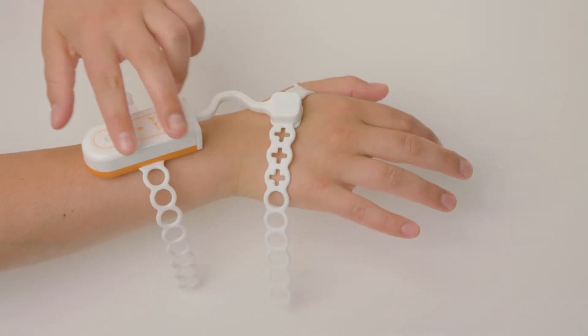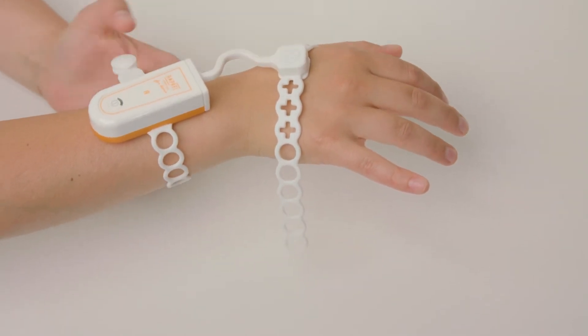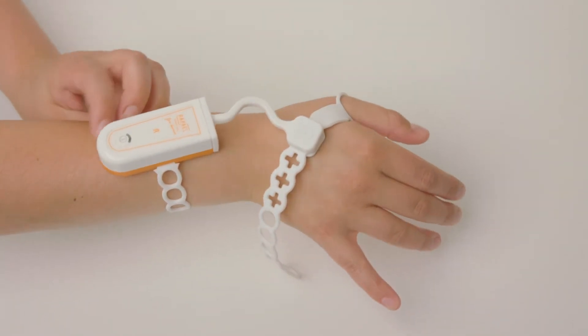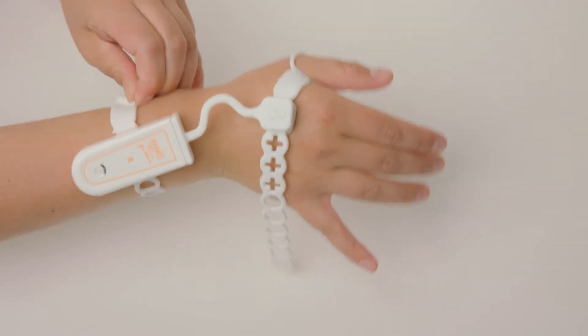Second, place the orange side of the body of the device on the back of your wrist and connect the strap snugly to secure it in place.